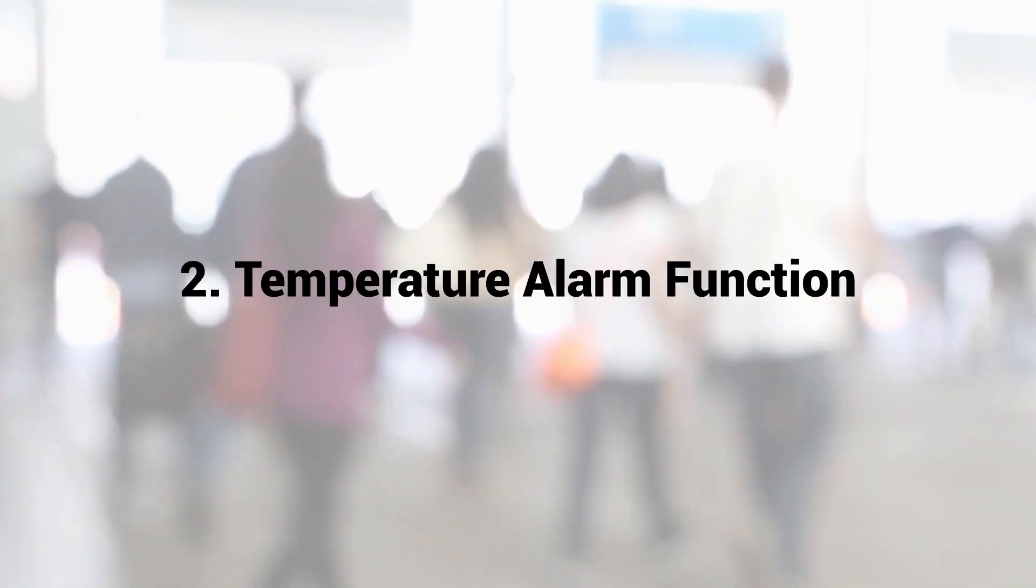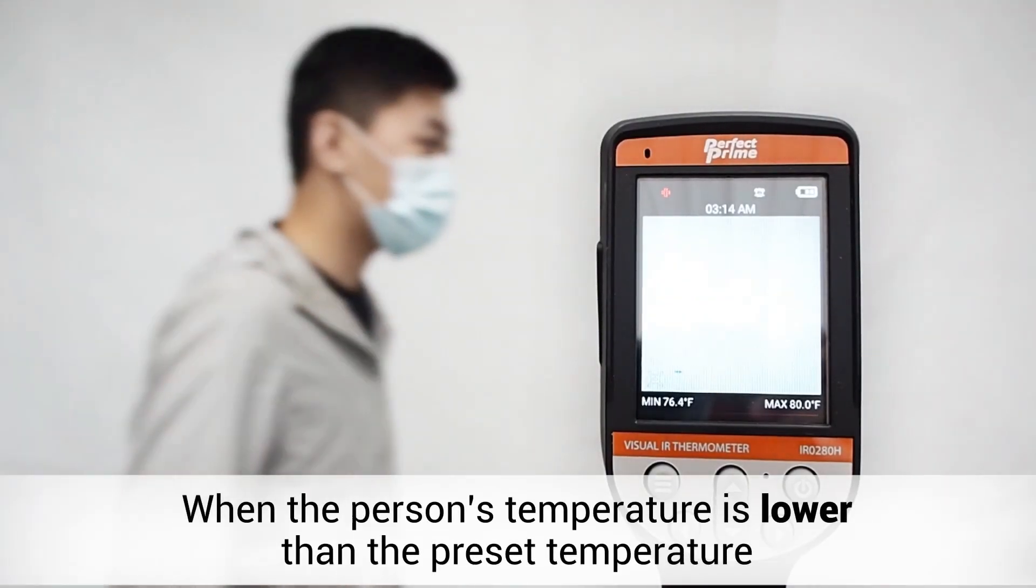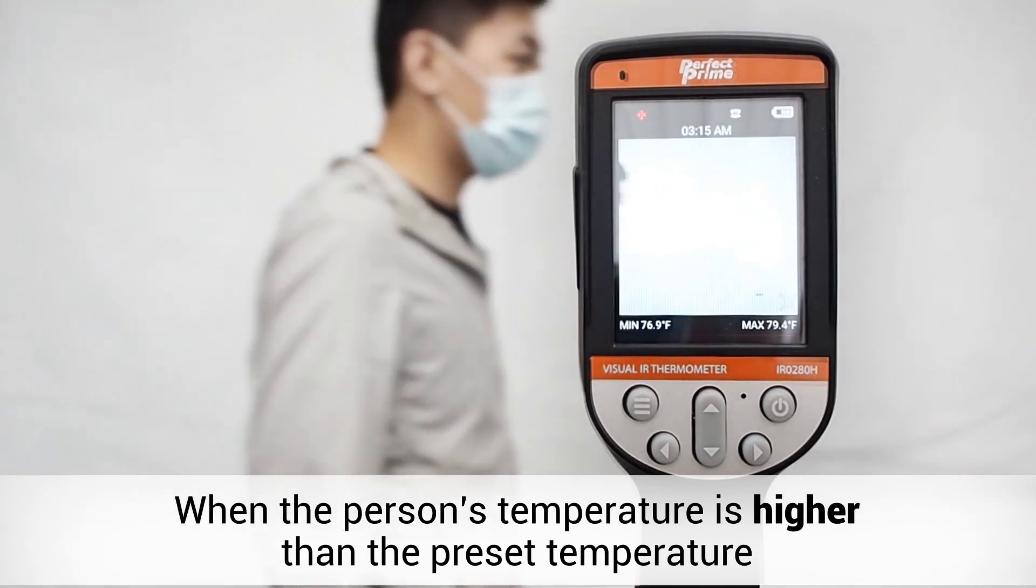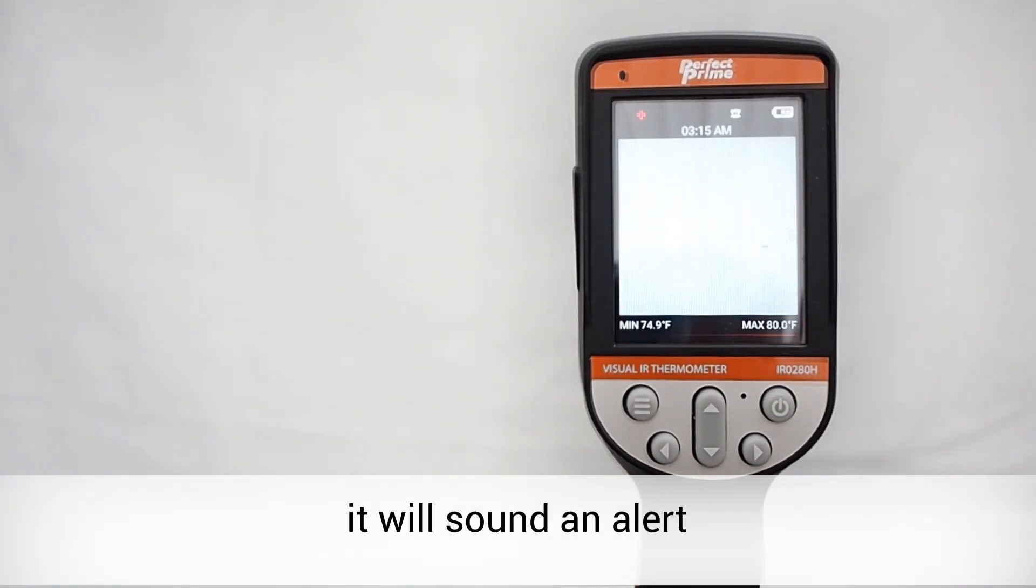Next up is an alarm function. Set the alarm temperature and the thermal camera will sound alert whenever an individual with higher than alarm temperature walks past.